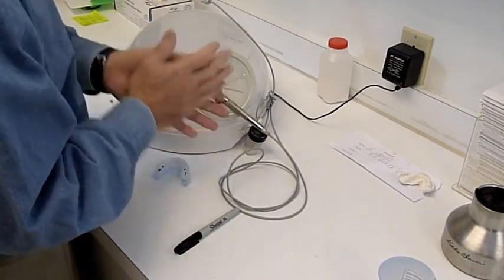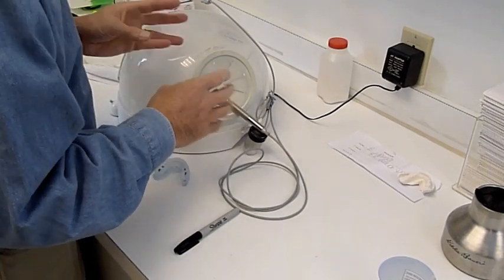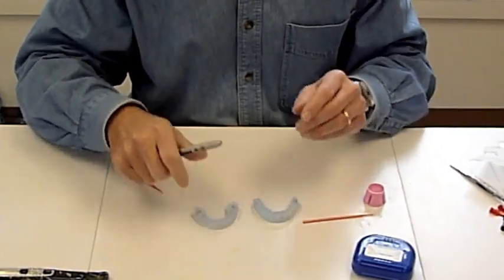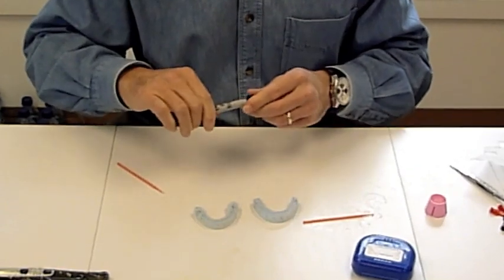There's some dust in here and that should just be blown out with an air syringe. So we have cleaned the inside of the trays with acetone and prepped the surface. It's now clean and dry.